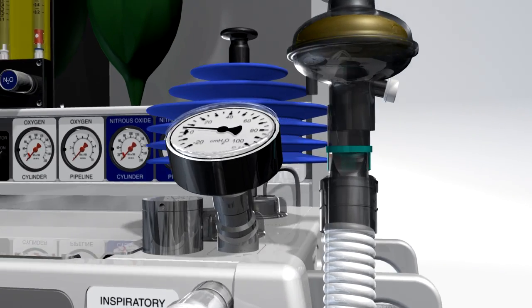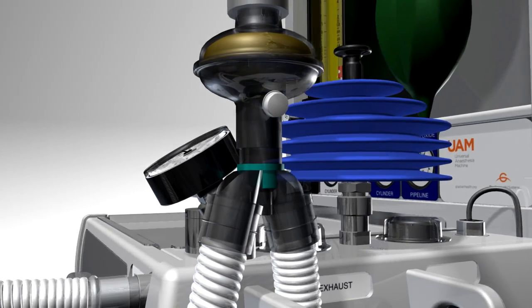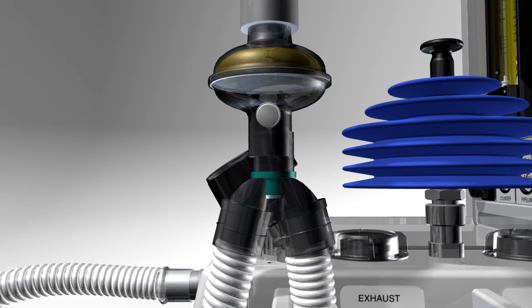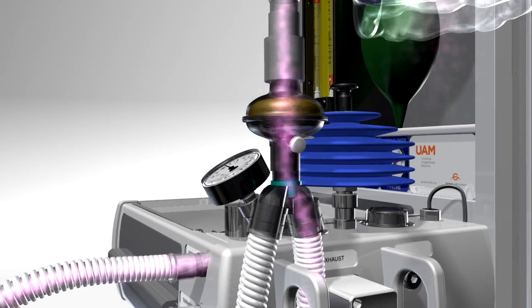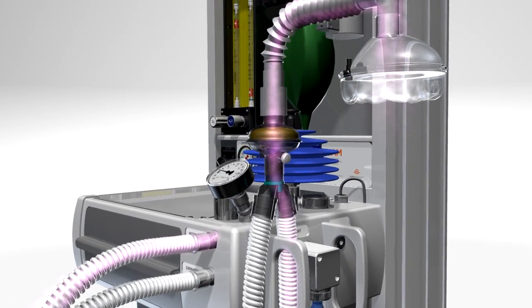The UAM uses a conventional Y-piece patient connection. The anesthetic gas flows to the patient through the Y-piece connected to a face mask, endotracheal tube or LMA.